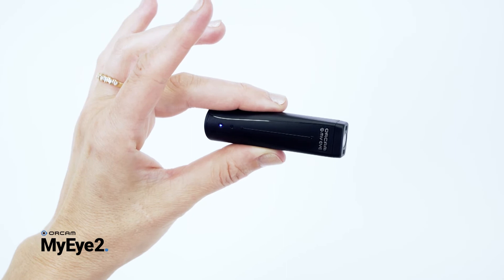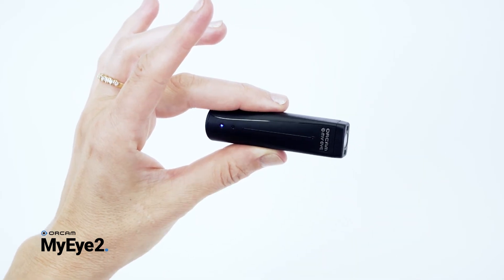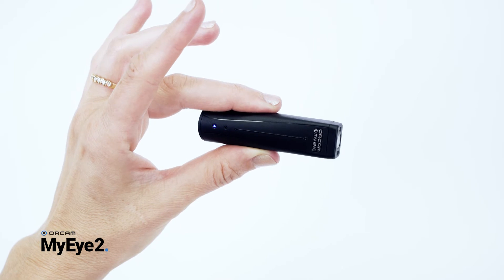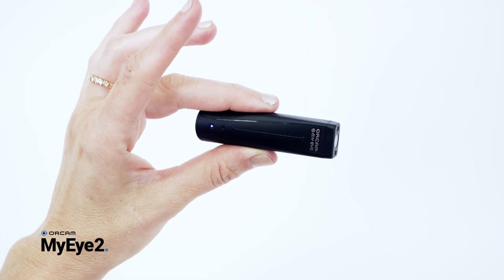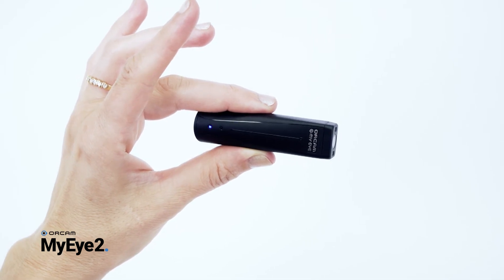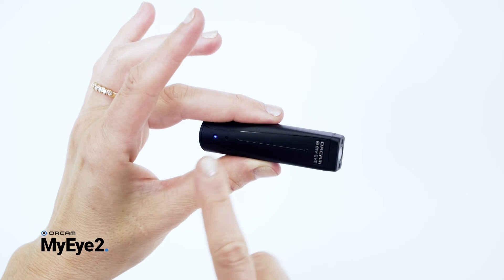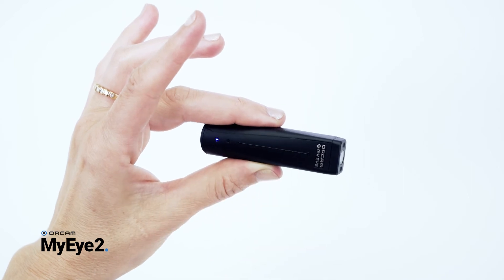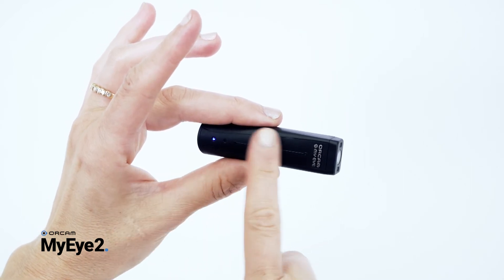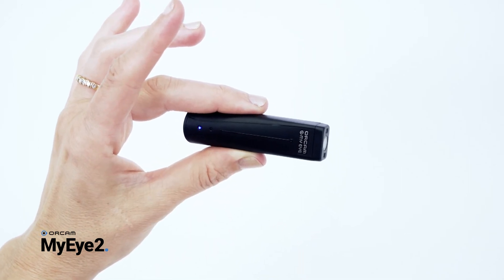Press the touch bar to choose the desired menu option. The device will then announce the menu selection. Follow the instructions. Tap the touch bar twice to exit a specific menu, and then tap twice to exit the Audio Settings menu entirely.